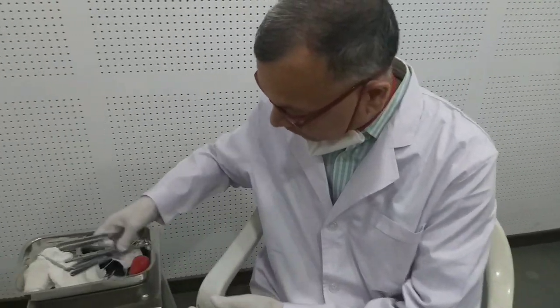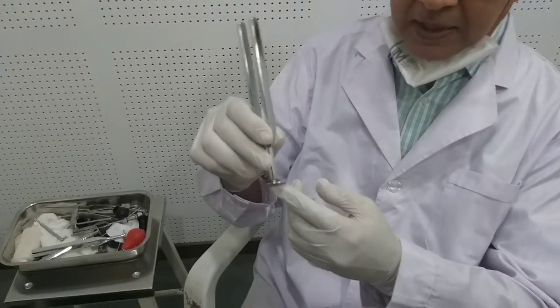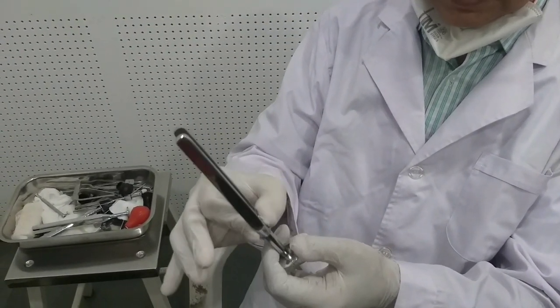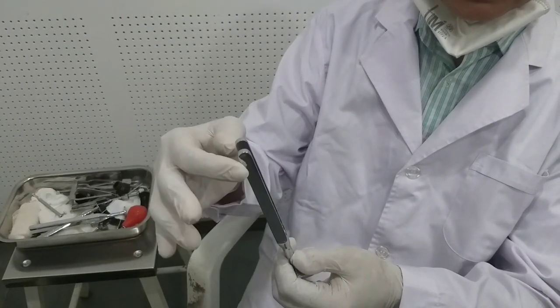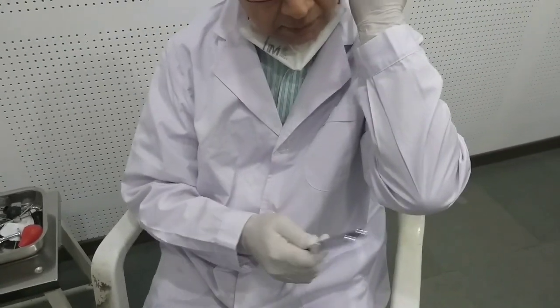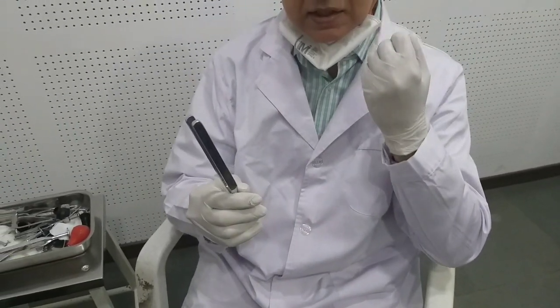You should know the different parts of the tuning fork. This is called the base of the tuning fork, this is the stem, this is the joint, and these are the two prongs. For charging, we can strike it at our elbow and charge it in this way.